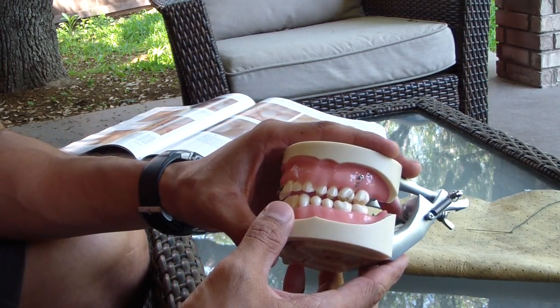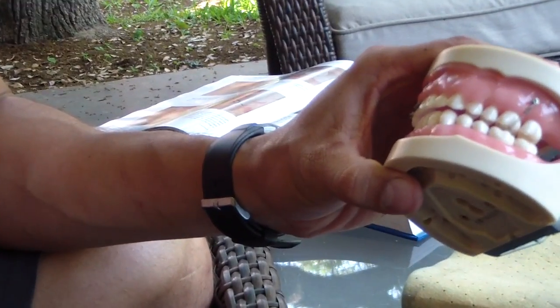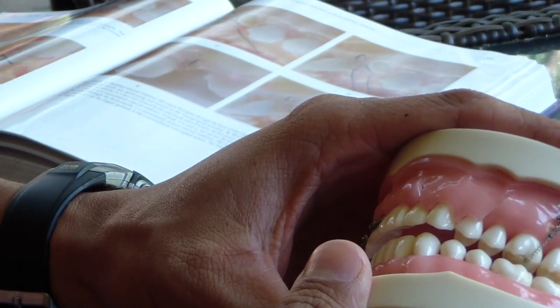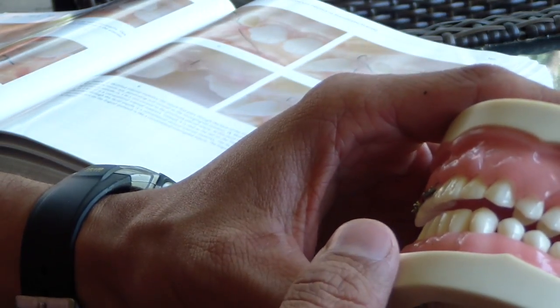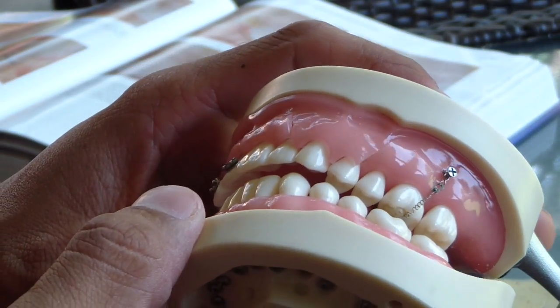Well, I was curious and I asked. So here's one technique — the vertical mattress suture technique. I'm going to describe it using a chamois cloth to sort of describe the principles. It's pretty easy. This is one of probably many thousand indications — that's my coverage statement.